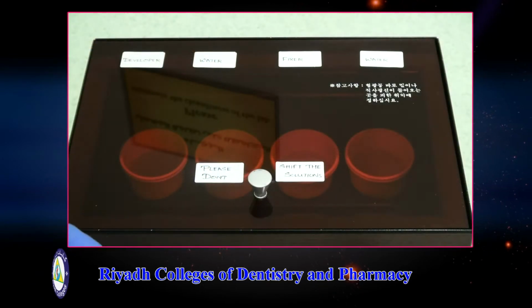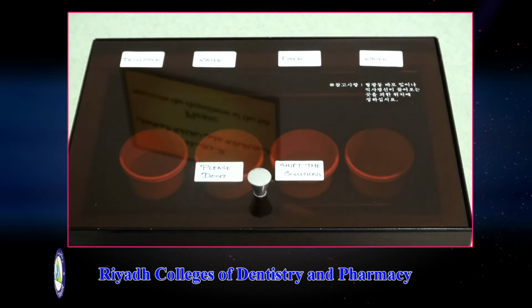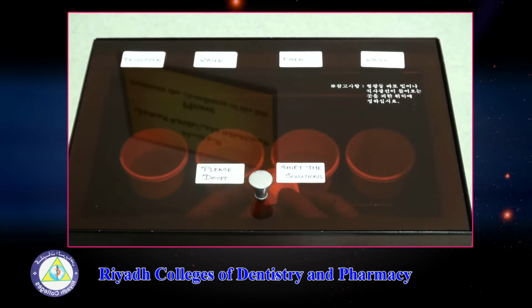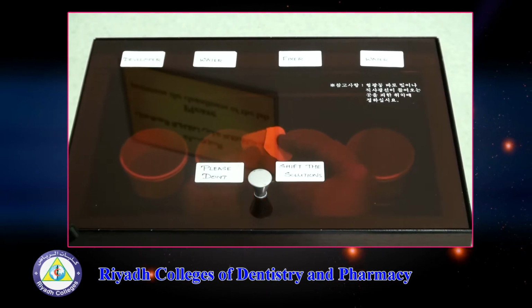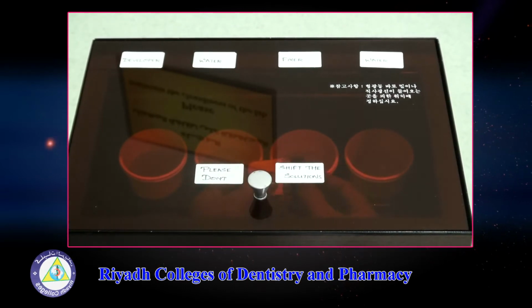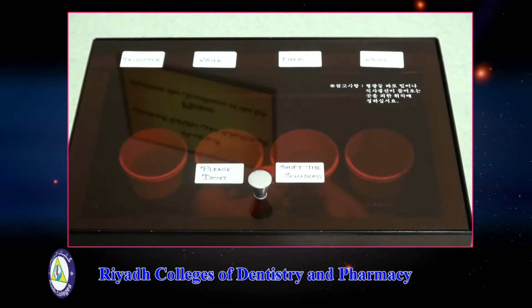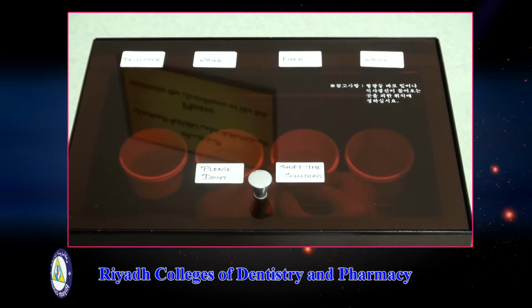So once the X-ray has been exposed, we are going to develop or process this X-ray film. So now this is an already exposed film. I am going to show the contents of the X-ray film. So when you are going to process the film, always remember the X-ray should be opened under the red glass of this box. If an X-ray film is opened outside, then there are high possibilities that the film gets damaged.